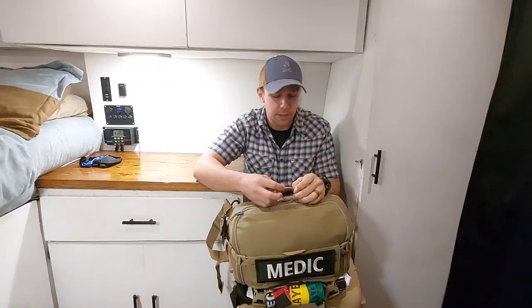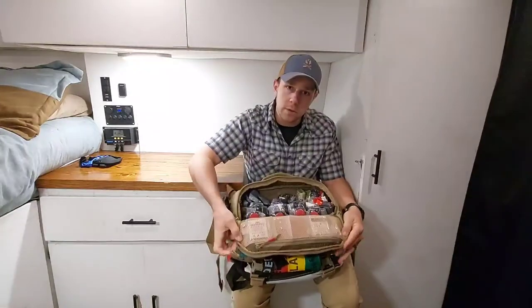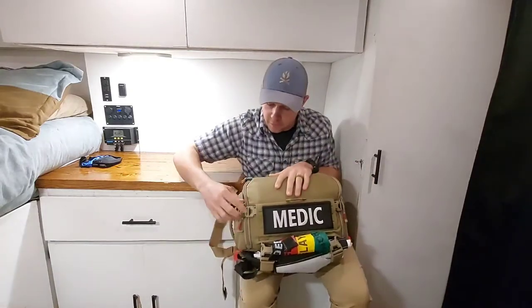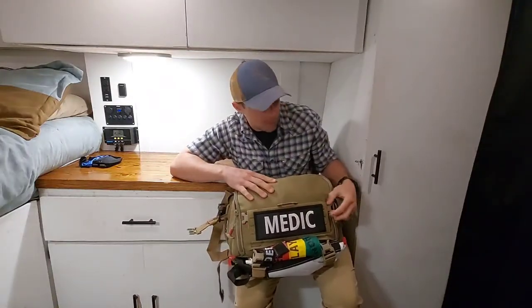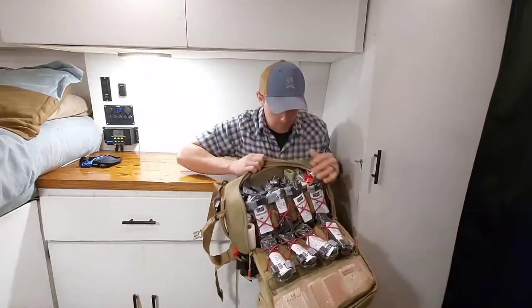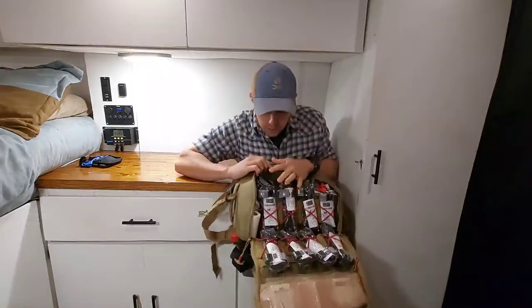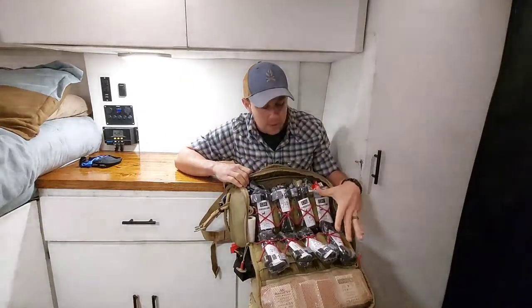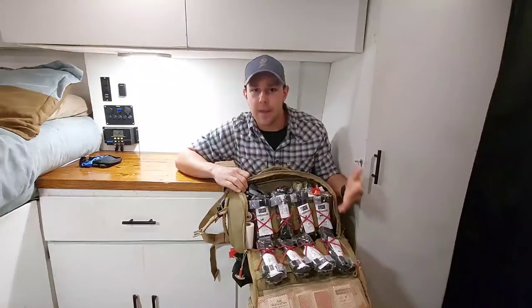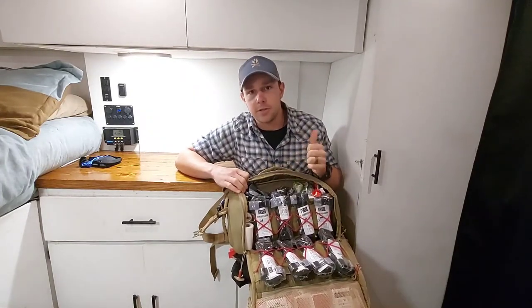Red being obviously bleeding. So this first compartment as you zip it down there are two buckles here that will stop the zipper, and when you fold the compartment open you have full access to everything you need in the bleeding compartment. If you need more access further down, all you have to do is unclip here and there and now you have more access to all your bleeding material. This kit is designed to treat roughly four to possibly eight patients, so I run eight CAT Gen 7 tourniquets. I keep all these in the packaging simply because these are my excess tourniquets — I know they haven't been used and they're good to go. Any tourniquet I carry on me, my first line tourniquets, are going to be out of package, staged, and always ready to go.